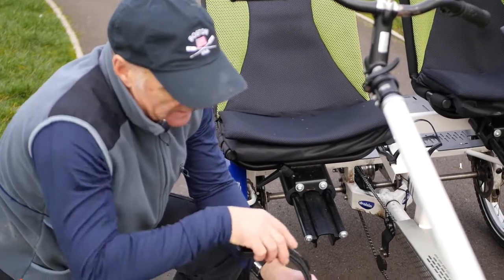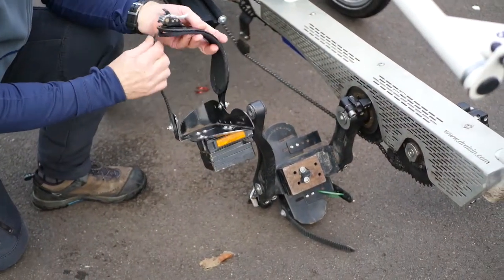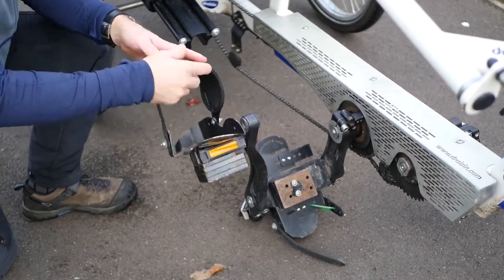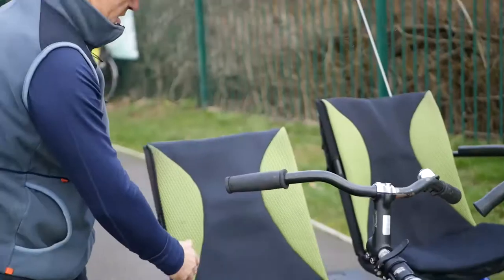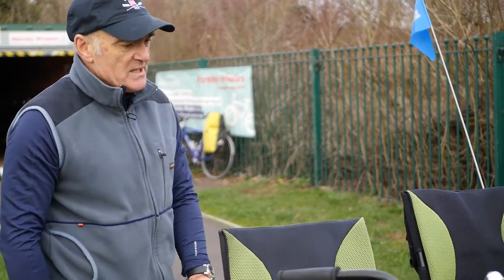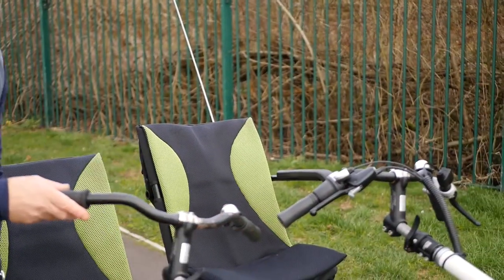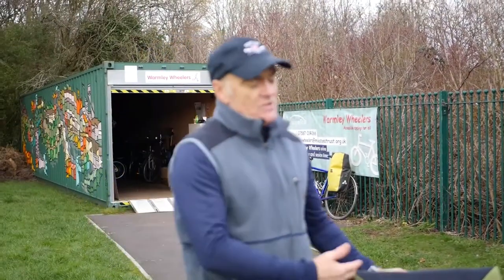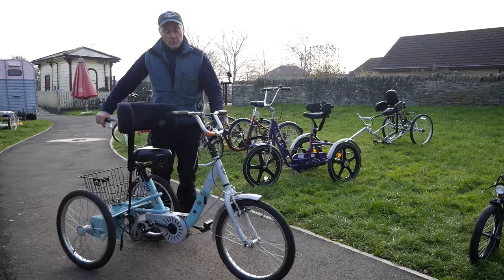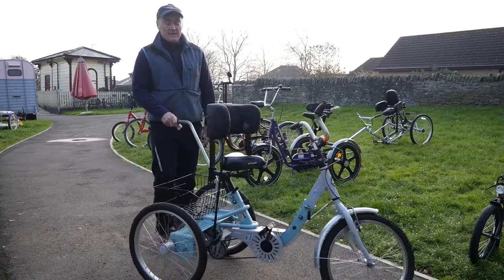There are quite elaborate pedals to make sure the feet are secure, though if service users have small feet this can sometimes be a bit tricky. The seating is very easy to move up and down depending on height, and once they're in, the armrest comes down and they're snug as a bug. Both people get involved with the steering but the pilot dominates. It's really popular because of that proximity — you feel reassured and part of the experience. It's a really nice bike.